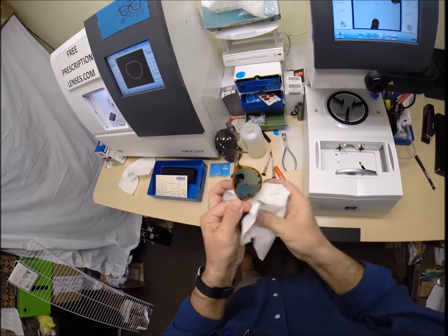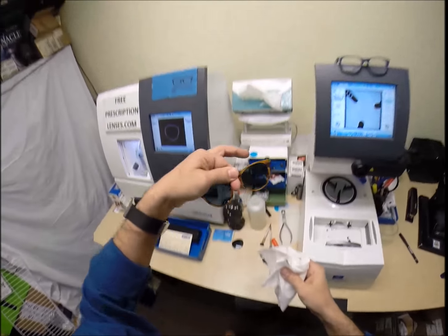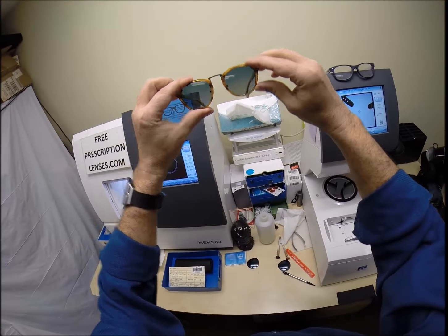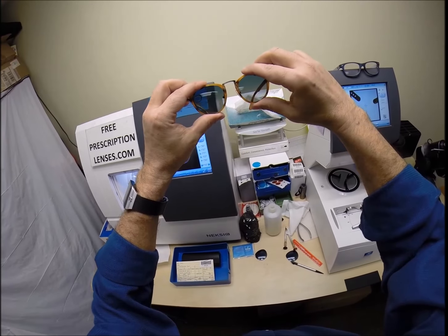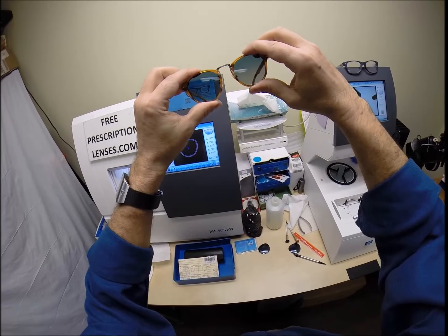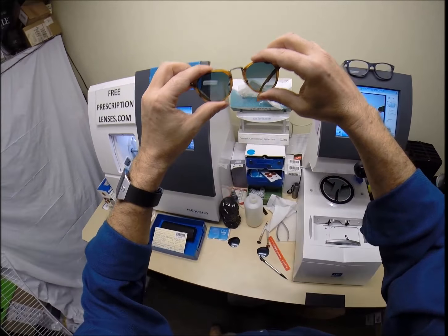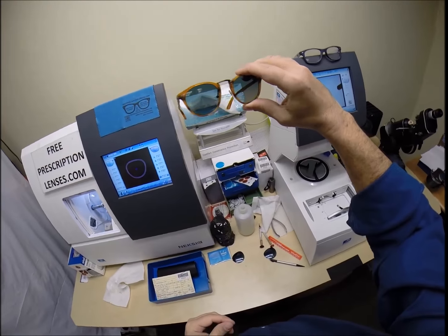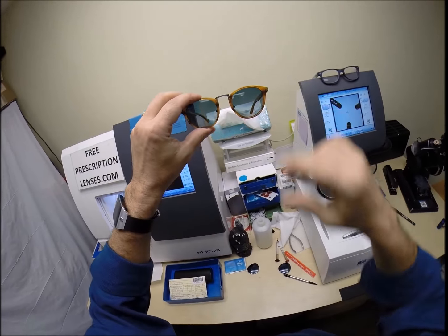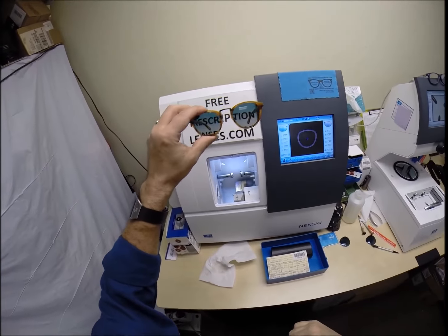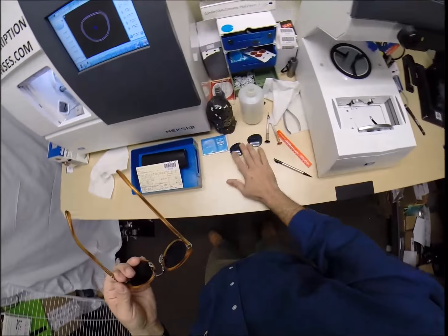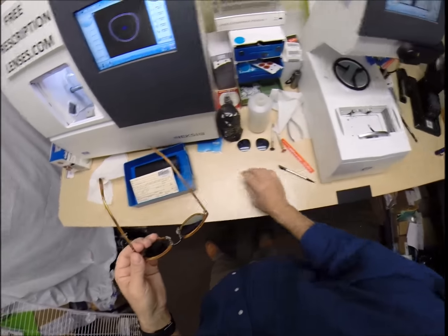I'll move the camera so all this is in there. But, when you get these in the mail, there's a small chance that they could be too loose or too tight. However, there's an 80% chance that one side is going to sit higher than the other. That is because 80% of people have one ear that is higher than the other. And I'm no exception. I'm part of that 80%. But, because of that statistic, 99% of all optical shops will do free adjustments if you ask them. But, I'm going to get these in standard alignment first. Also known as a three-point stance.